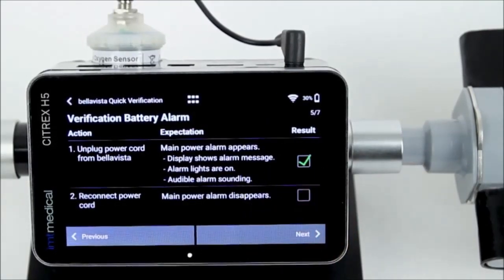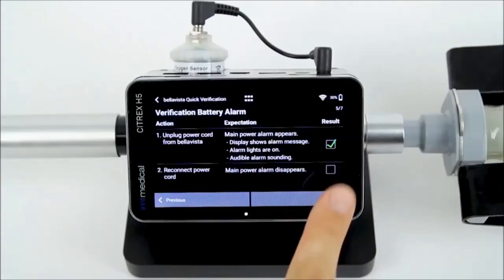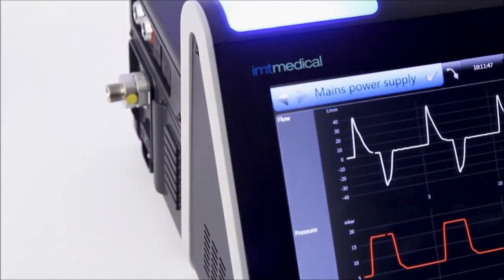On the next two steps, the app guides you on how to check the alarm and power supply system. It's very easy as well.